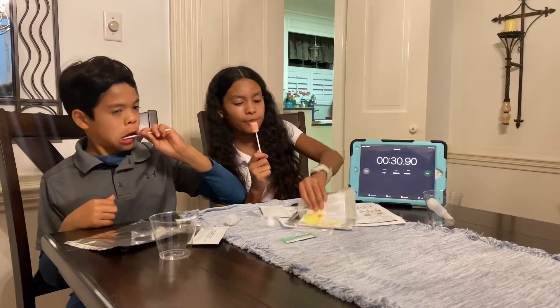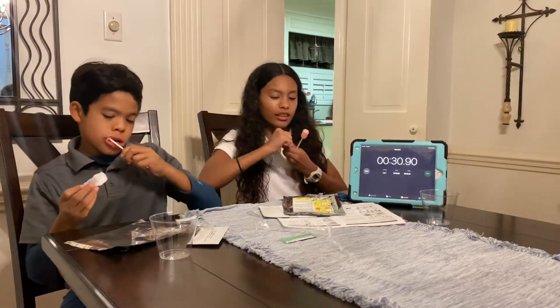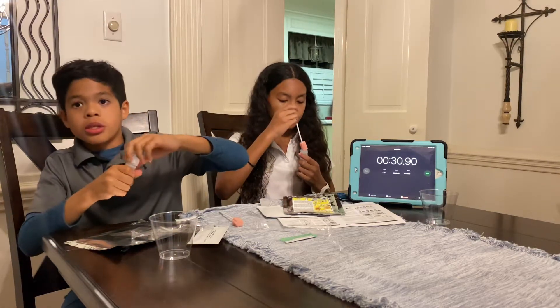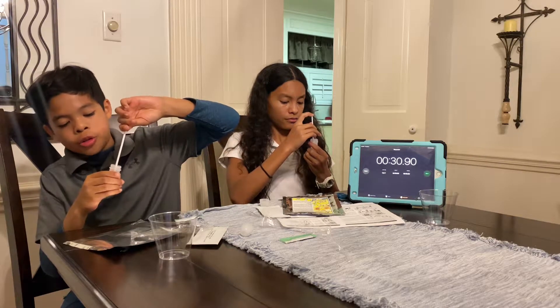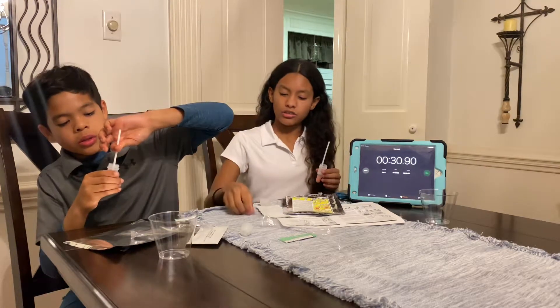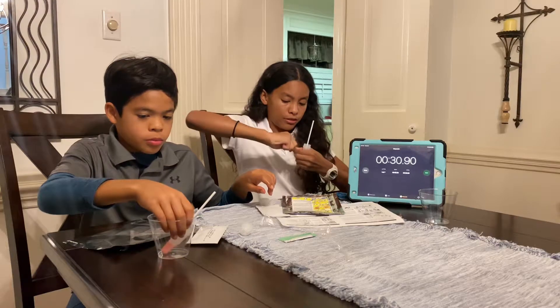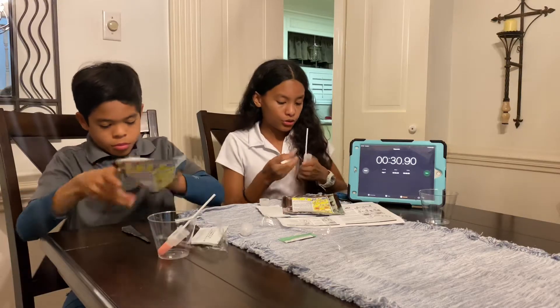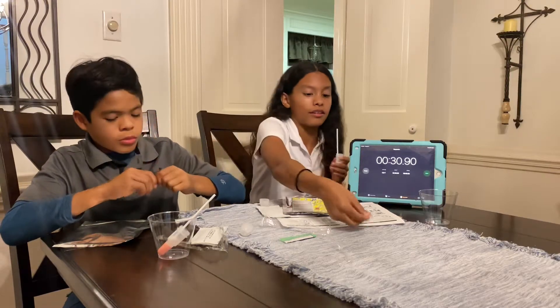Once you have done that, take the mouthwash that is inside the test tube — the one you previously spit into — and put the cotton swab in very slowly to make sure none of your spit falls out. Now take the reagent that is included, open it — you can just twist it — and add it inside while the cotton swab is inside the tube.